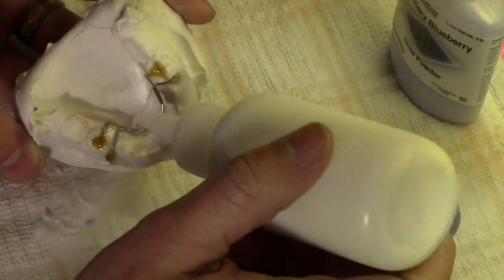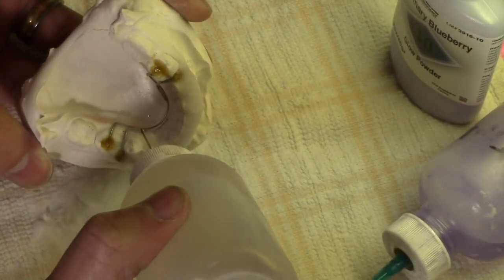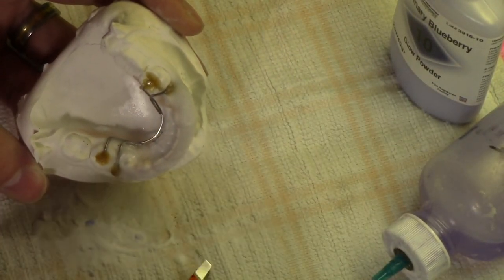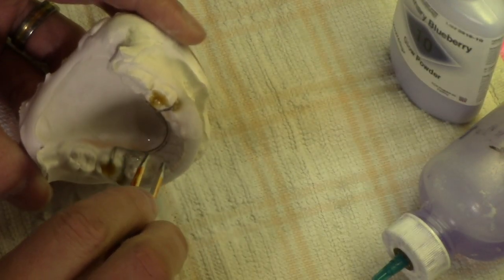I'm going to put a little bit of clear acrylic down as padding for my name insert. I'm going to put a little drop on my name here — that tends to help because there's actually a sticky side.